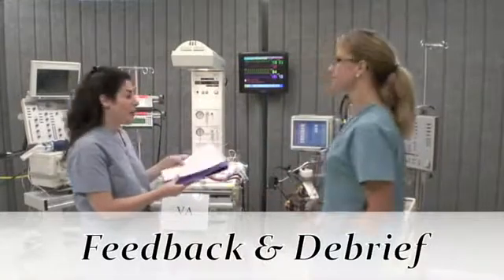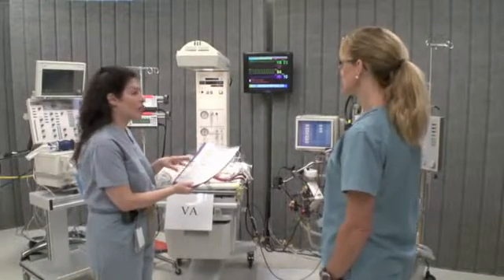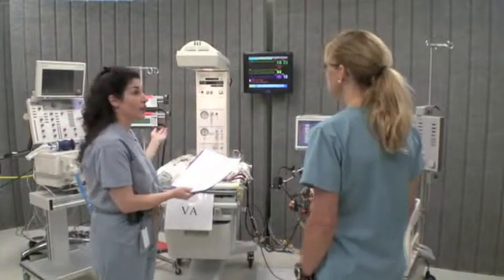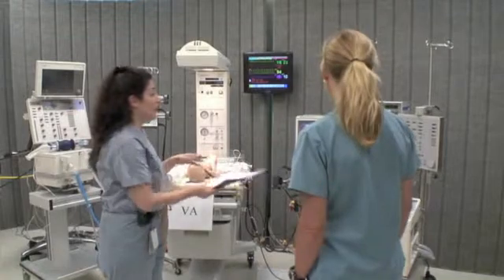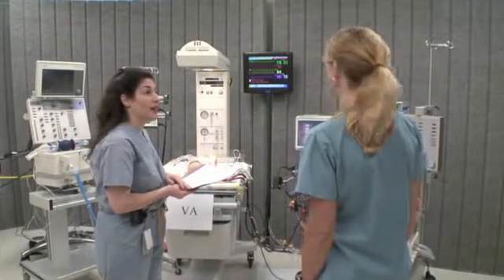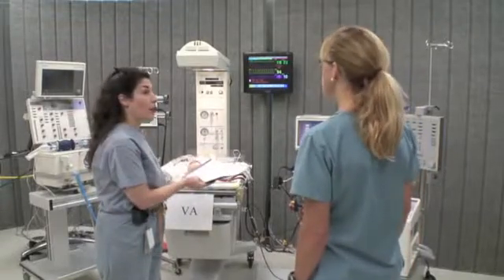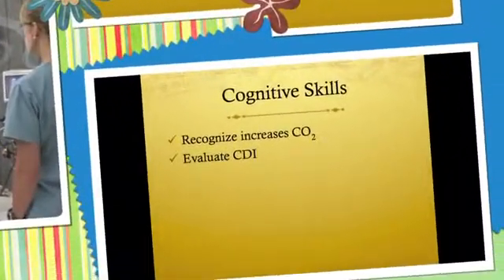Nice job. Our patient is stable and you found the problem. You appropriately looked at the gases and noticed that CO2 was too high and oxygen was too low, indicating that the oxygenator was not working. You also noticed that the CDI was reflecting the same real-time numbers, confirming the patient was truly desaturating — not just a monitoring artifact. You then looked at the rest of the ECMO circuit to determine why the oxygenator was not working and found it was actually just a leak in the gas supply to the oxygenator. You communicated that well to the nurse at the bedside, worked as a team, helped the baby while fixing the problem, and correctly determined there was no indication to come off ECMO. Very nice.